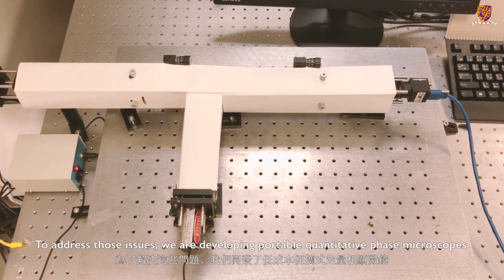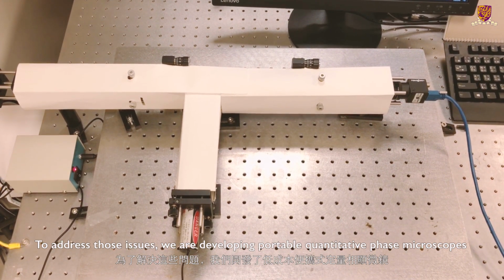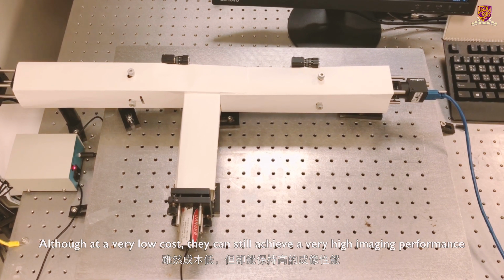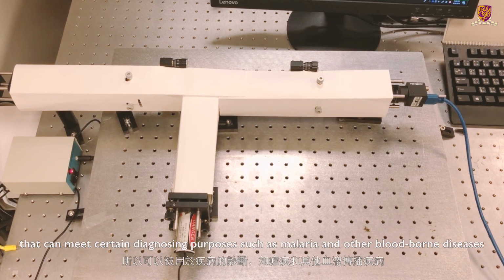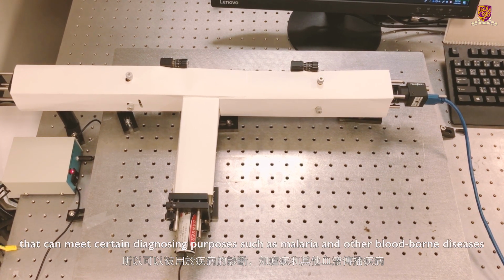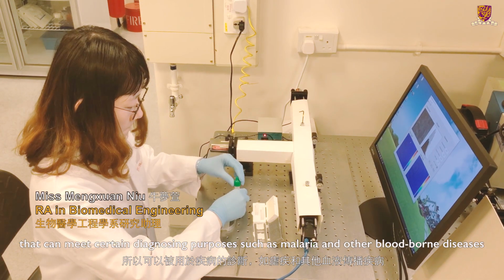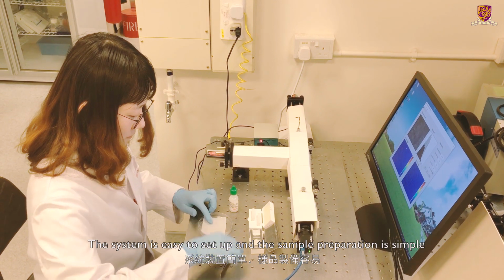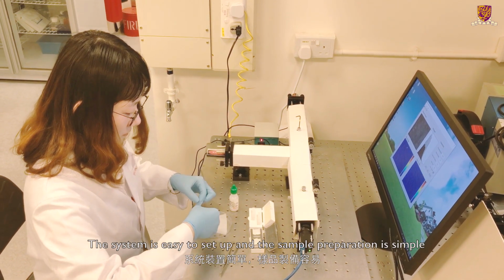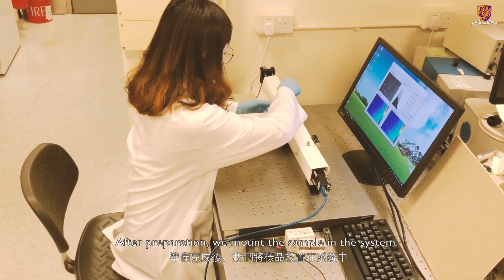To address those issues, we are developing portable quantitative phase microscopes. Although at a very low cost, they can still achieve a very high imaging performance that can meet certain diagnosing purposes, such as malaria and other blood-borne diseases. The system is easy to set up and the sample preparation is simple. After preparation, we mount the sample in the system.